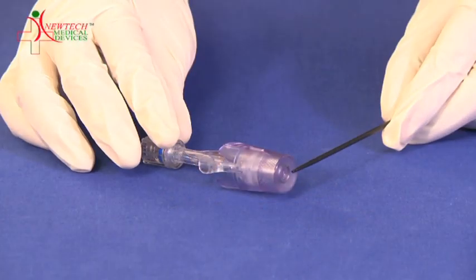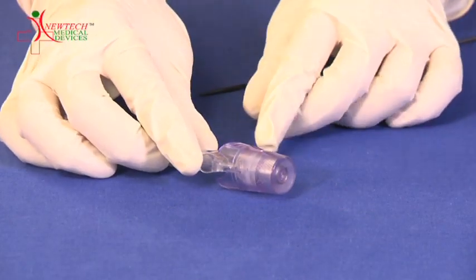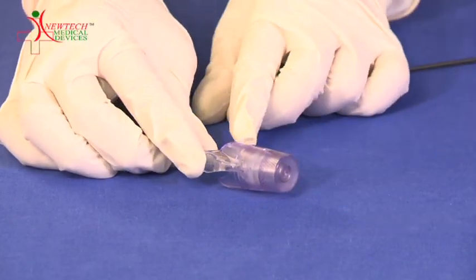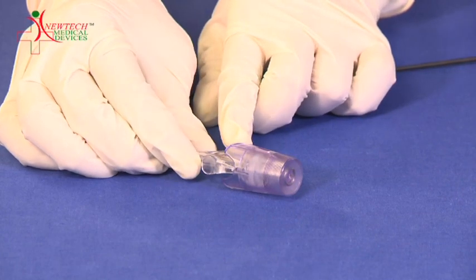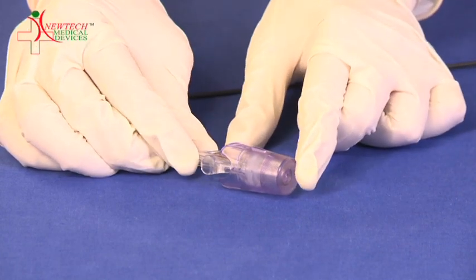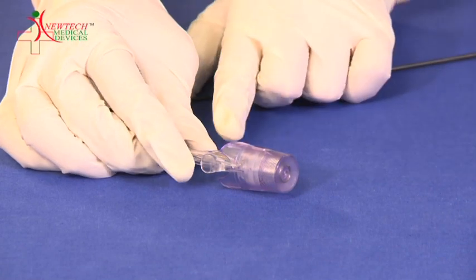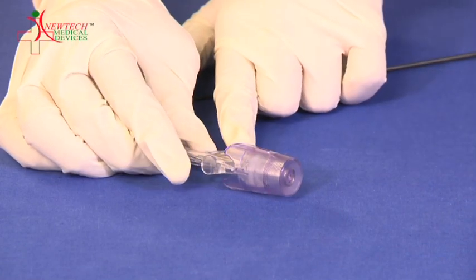The third type of connector is the push-click PTCA wire connector. In this type of connector, if we push it, the opening will get open, and when we click, the opening gets closed.